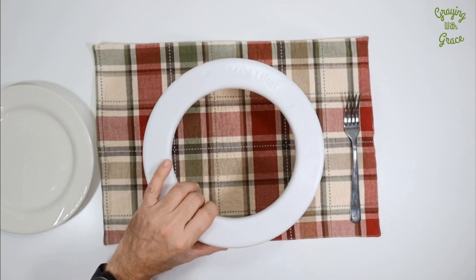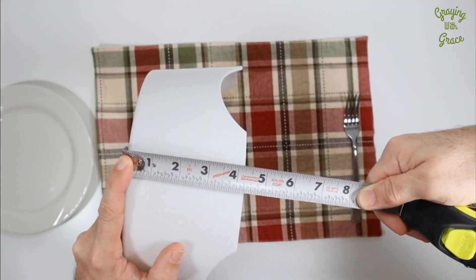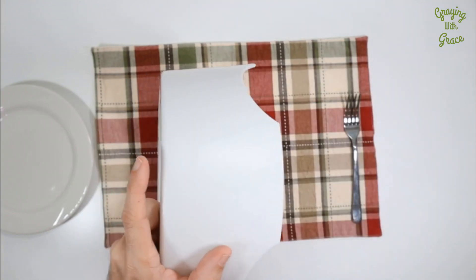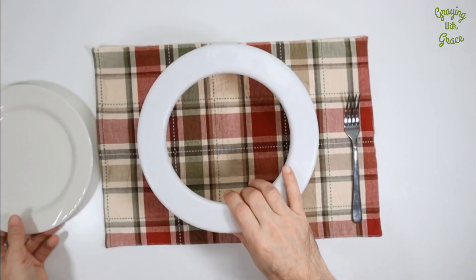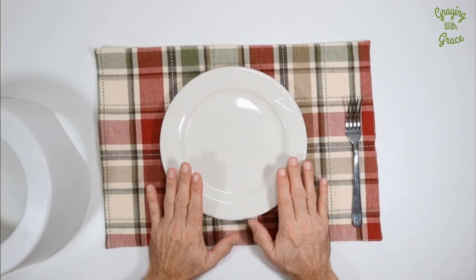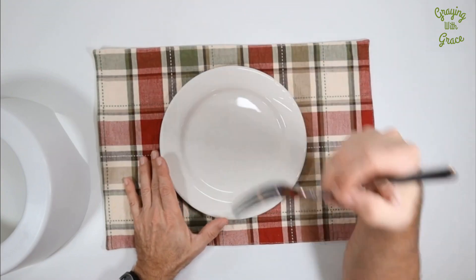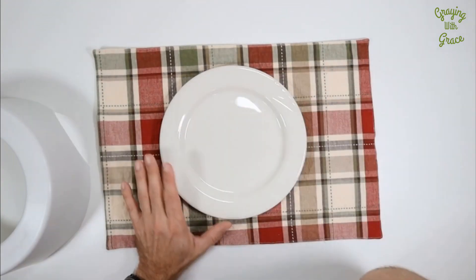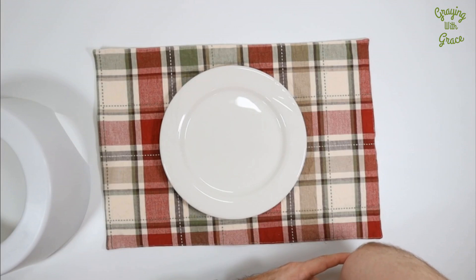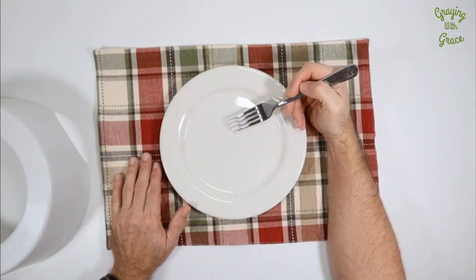How it works: this is the actual Meal Lifter device. It lifts your plate up off the table surface by four and a quarter inches. How that's helpful is if you think of the typical eating position — table's down here, you pick up the fork — then as you're eating or sitting upright, either your elbow leaves the surface of the table, or people sometimes will bring their head to the fork to make it easier.